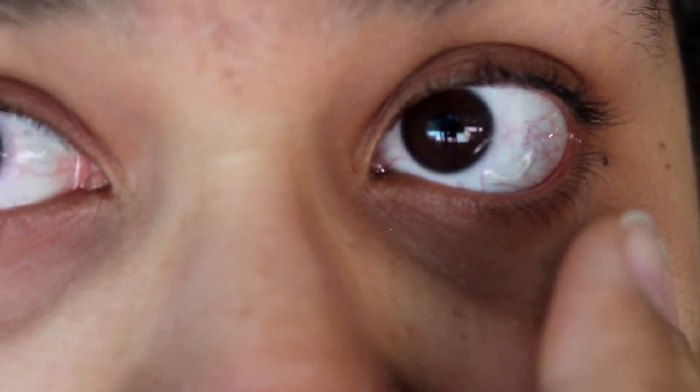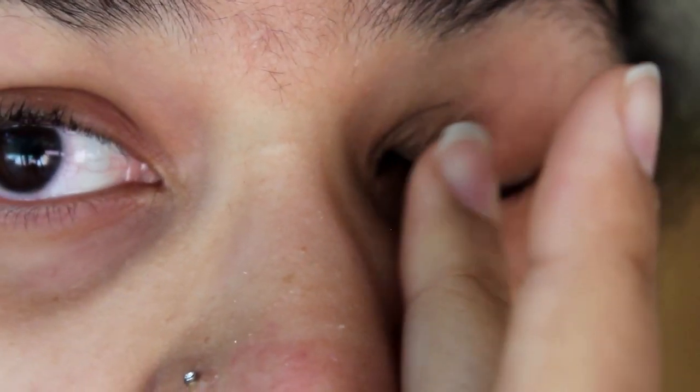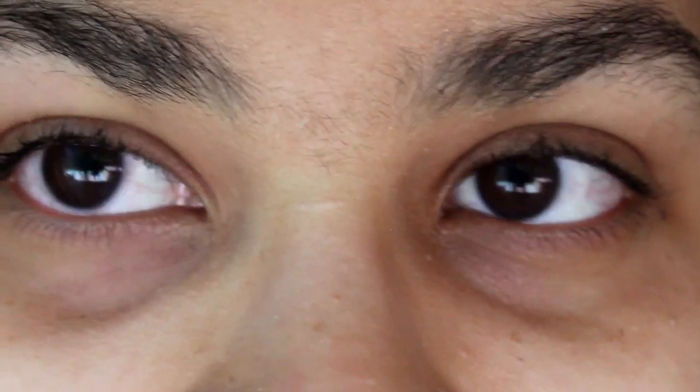I think there's a bug on my foot right now, which is kind of annoying. Then I'll just give a slow blink and a very gentle rub. And now it's on. Both contacts are on. Obviously this one took a lot less time now that I can see with my right eye.